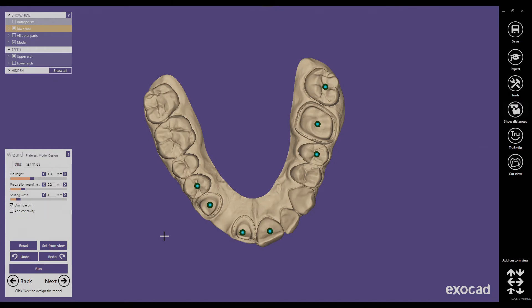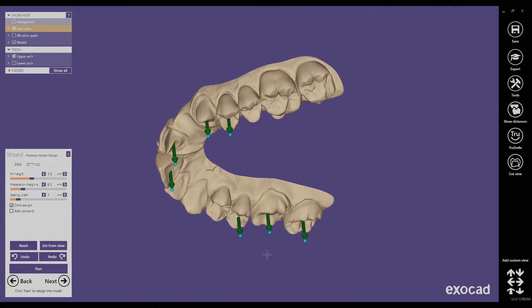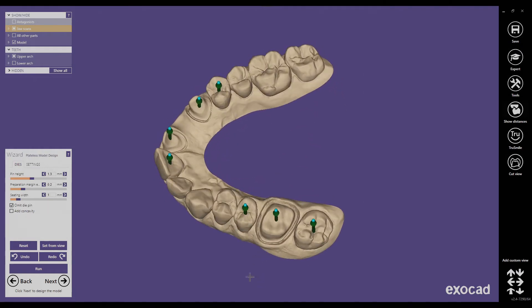At this step we have to define the insertion axis of the dies. We want them as perpendicular to the model base as possible for the best fit. By default they are all perpendicular to the model base, which can be seen from the side view. We are going to keep this insertion axis and do not need to change anything on the settings because this is already handled by the preset we imported at the start. All we need to do is click on run.